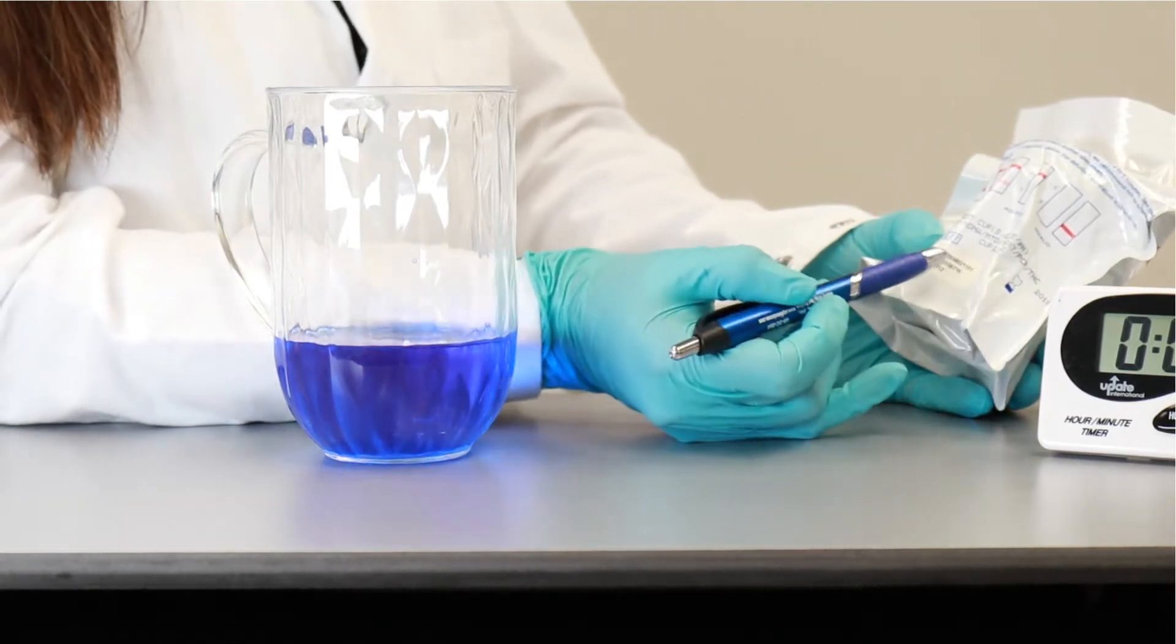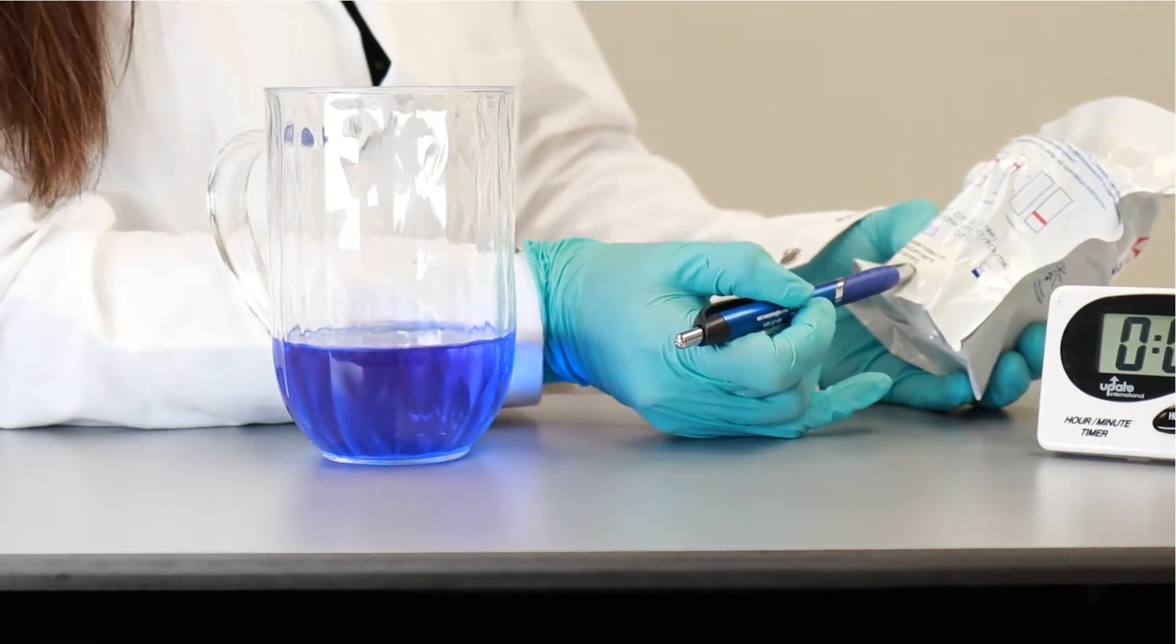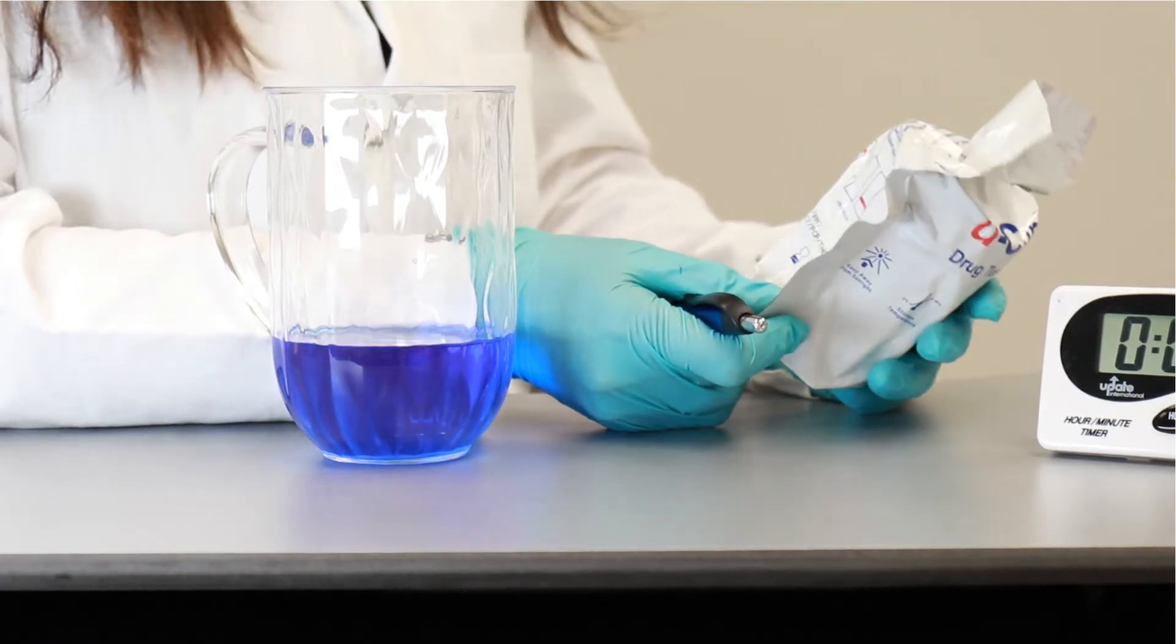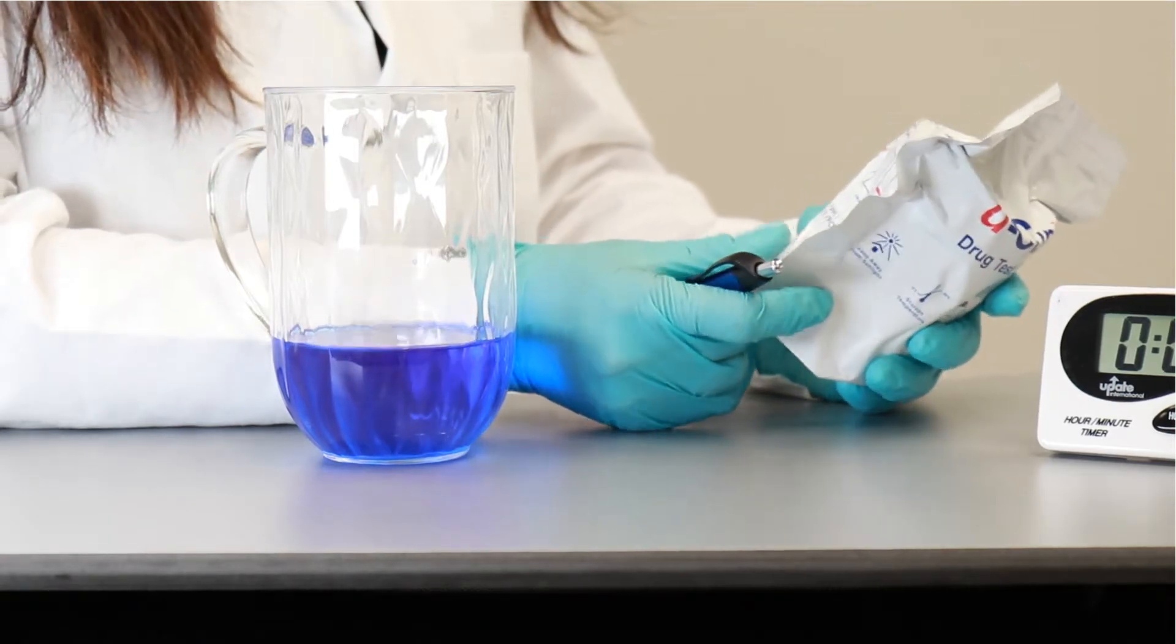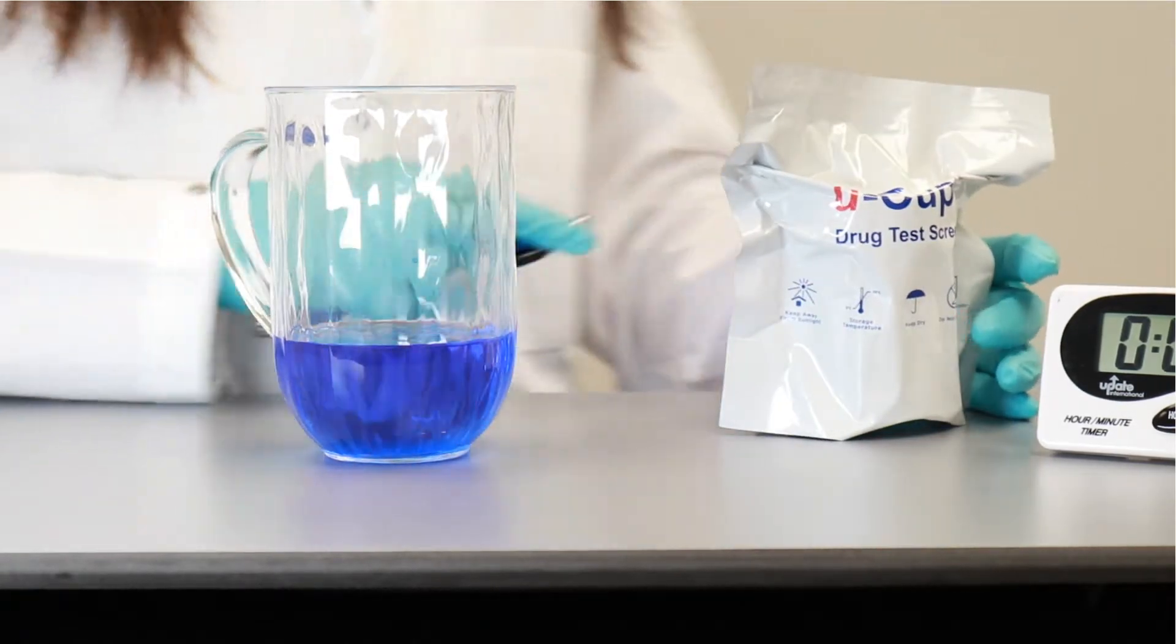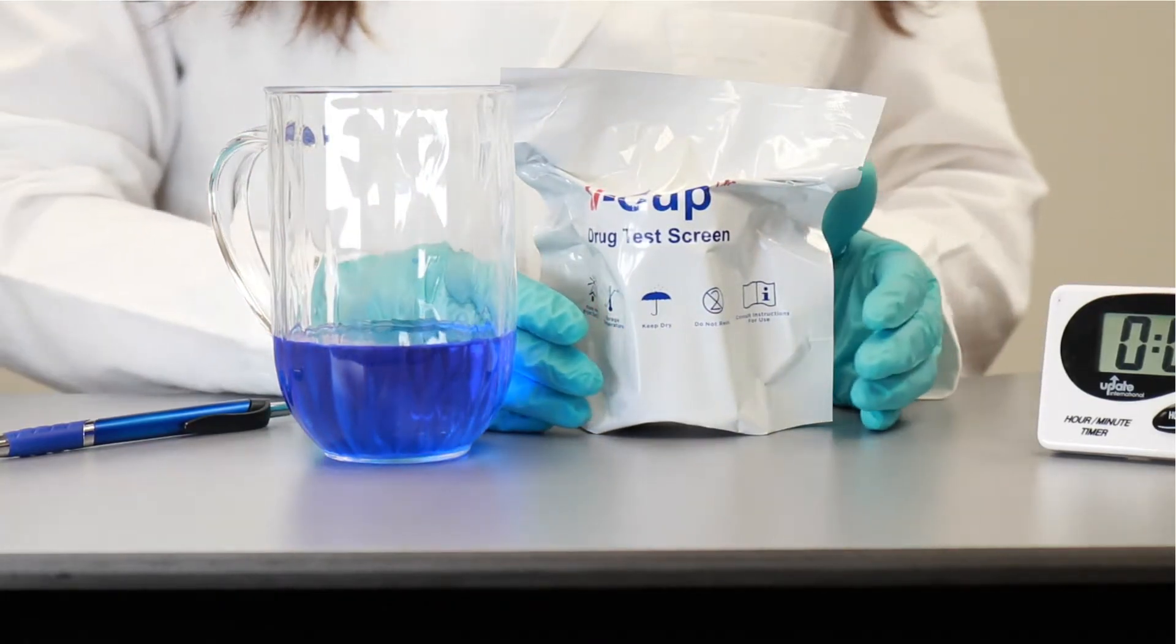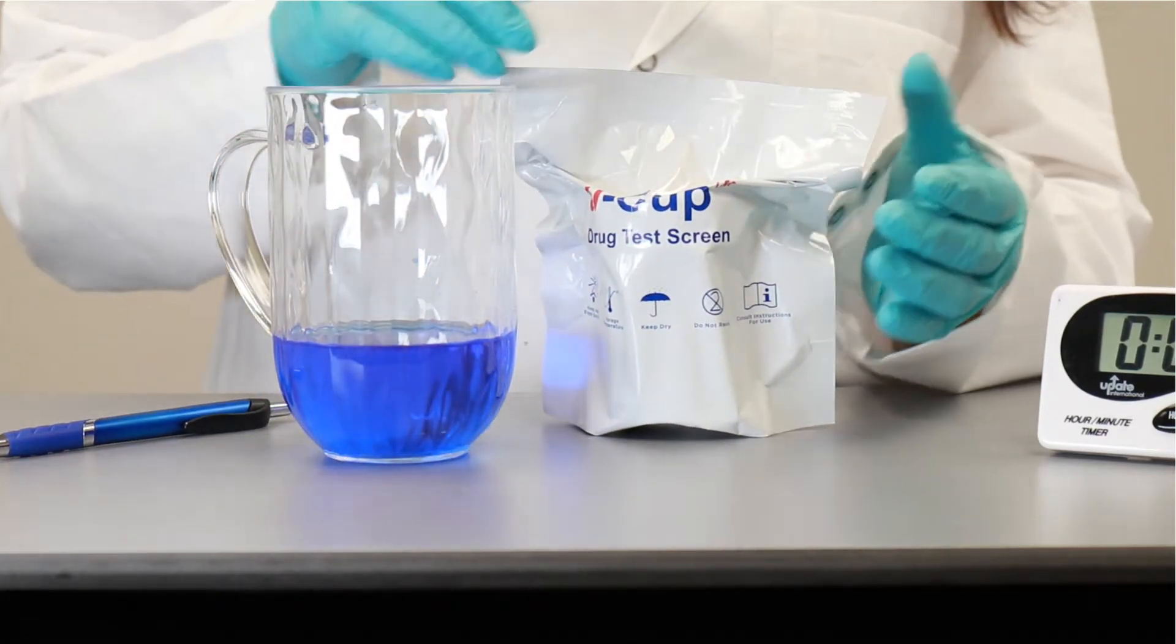What you should also note, that there is a lot number right here, and expiration date. So if there is any problem with the drug test device, you can call us and let us know what the problem is. Again, the drug tests are completely customizable. We have OEM services and private label options available.